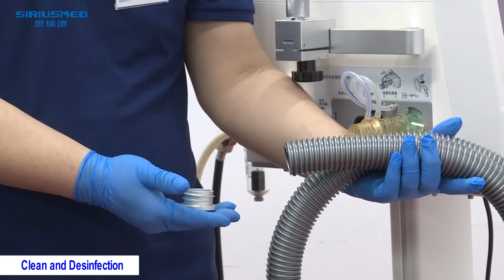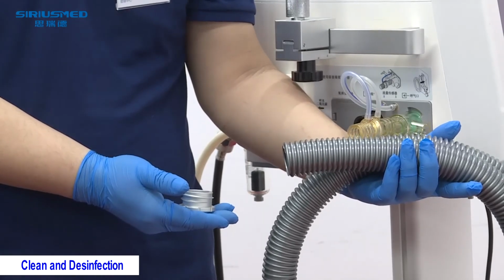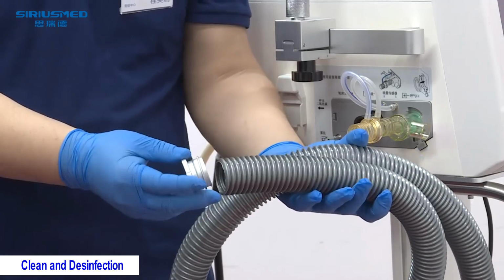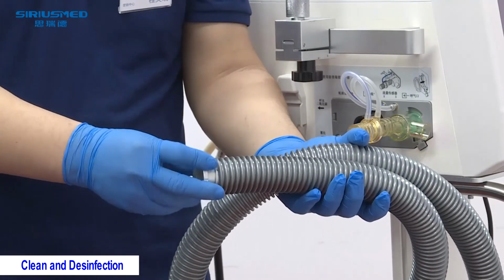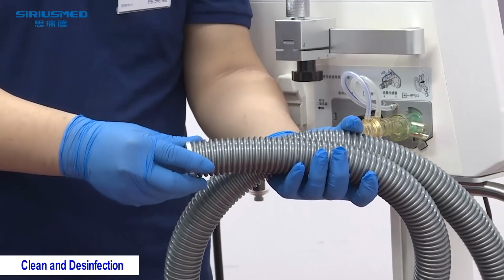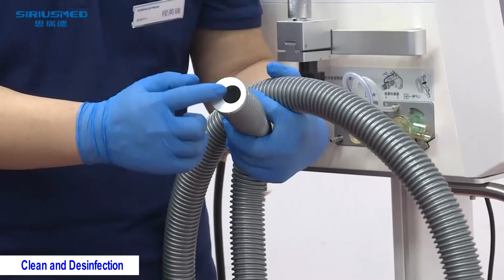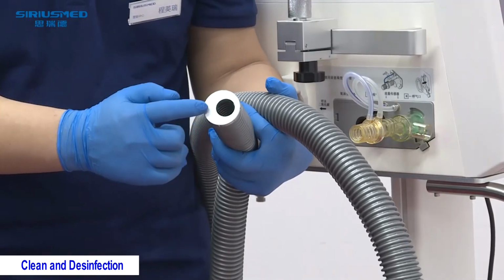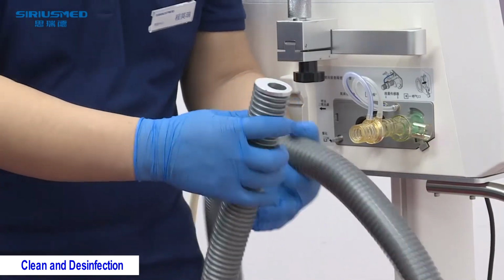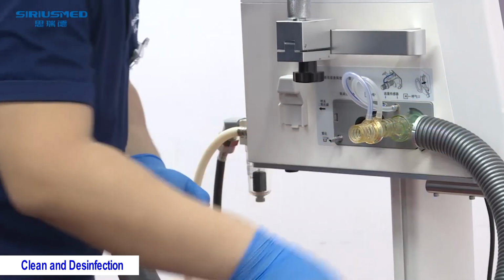After the disinfection, we need to pay attention to the connection of the metal connector to this exhaust hose. Please make sure you turn it anti-clockwise to install. And see here the narrow side and the wider side. Keep the narrow side near the main unit and connect to the exhaust port.